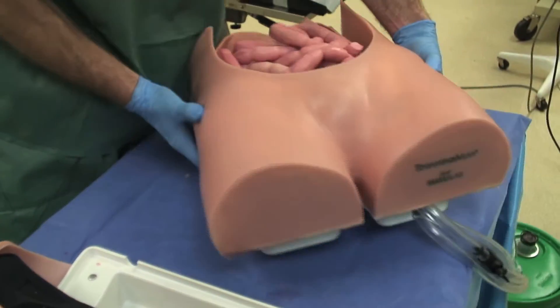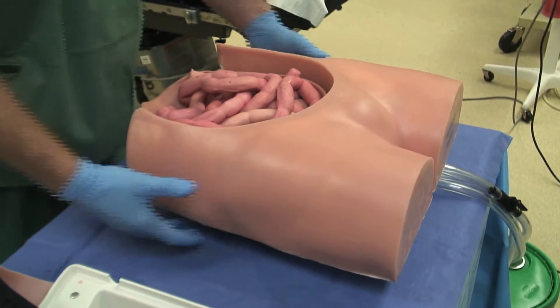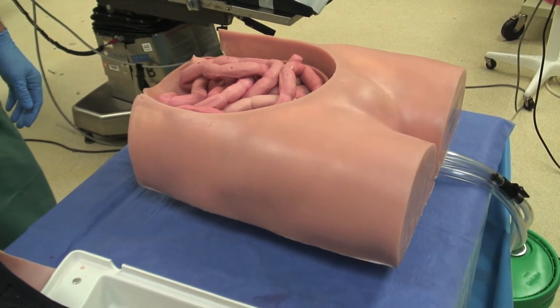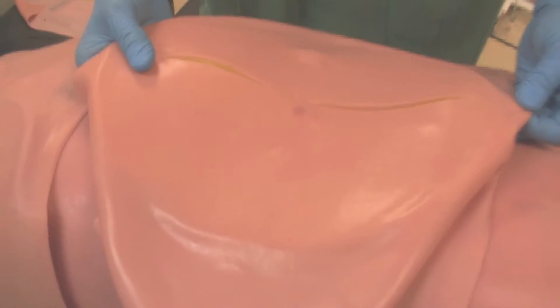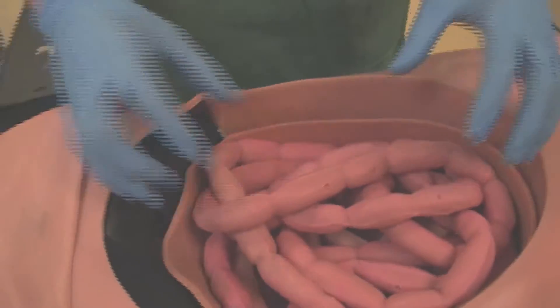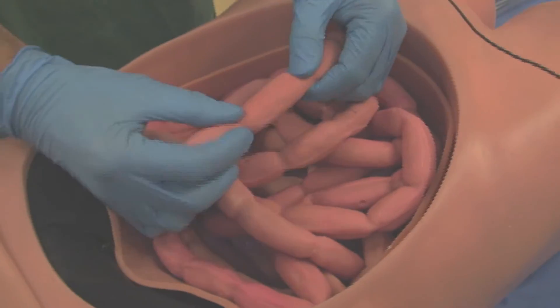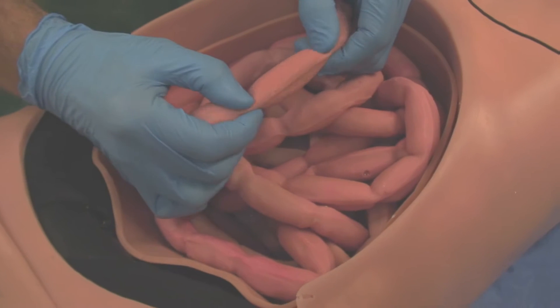Next is the Abdomen Platform, which can easily attach to a pre-existing TraumaMan trainer. The Abdominal Cavity seen here contains the Nicked Aorta Catastrophic Event Team Training Package, including small intestines and arterial bifurcation.